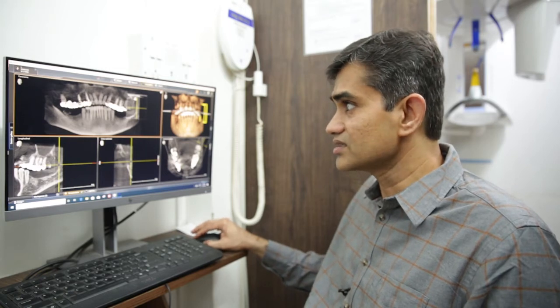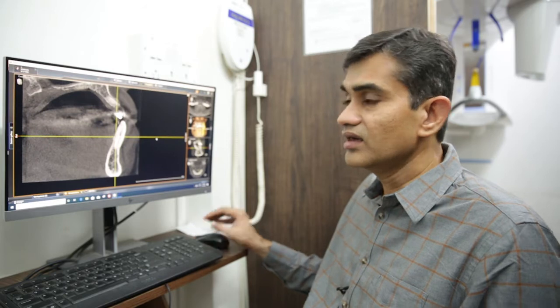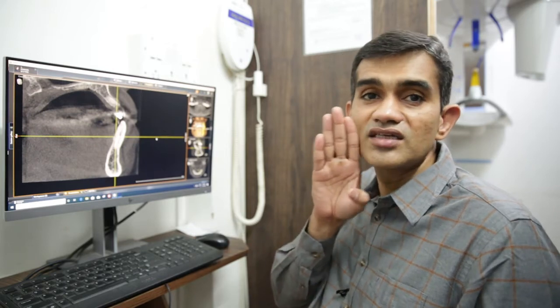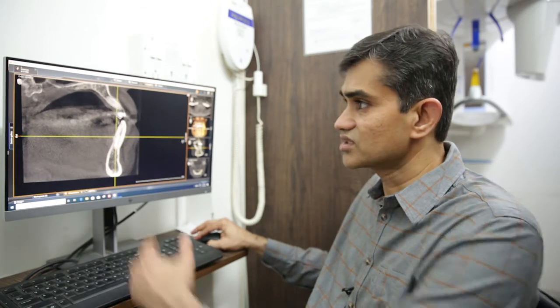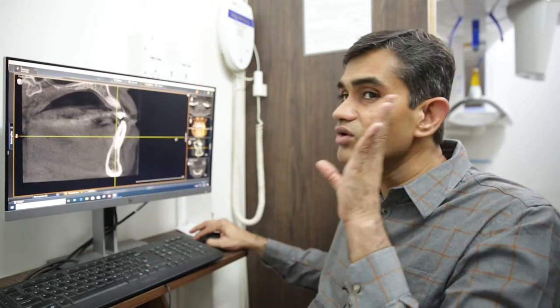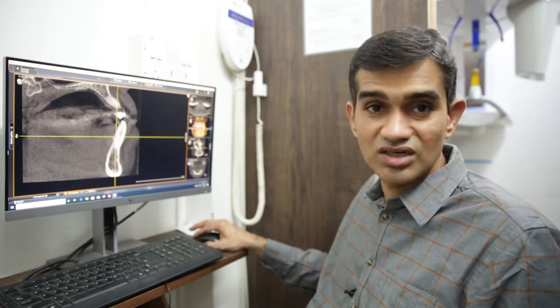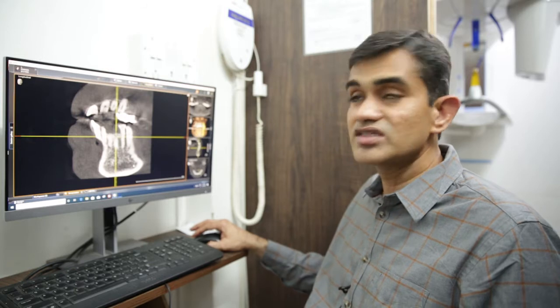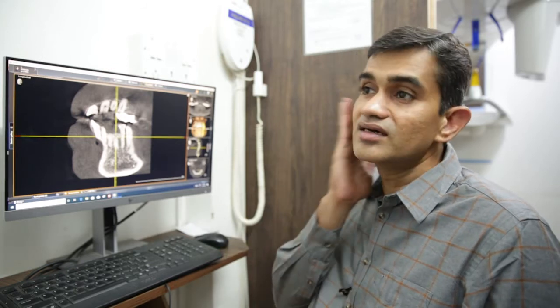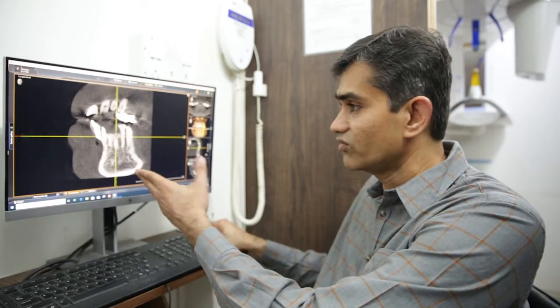For example, in the cross sectional view, at each different place we will see a cross section of the images. So we will know how it is going to look at each image. Then there is something called the longitudinal view, which gives us the side to side view — how it is going to look from one side to the other side.